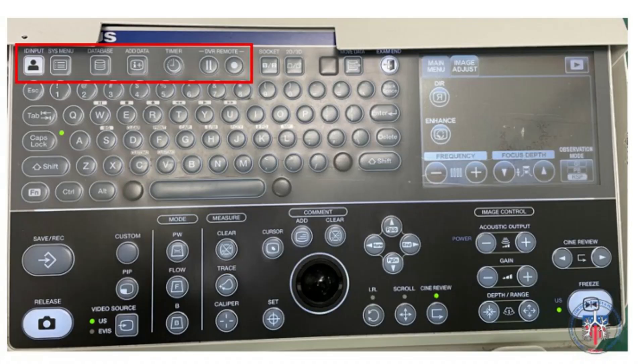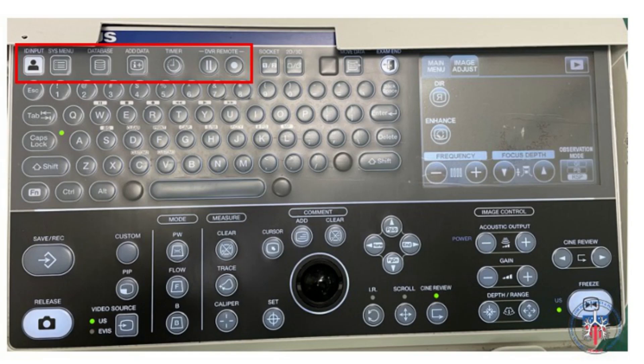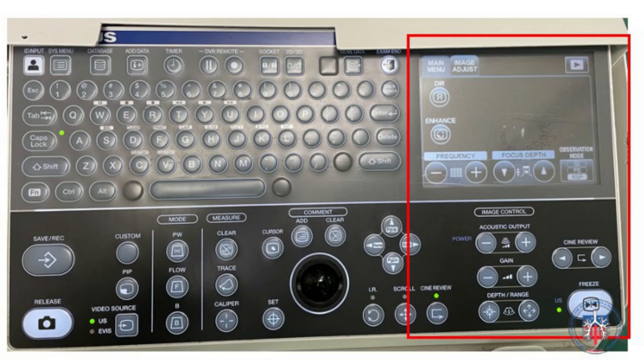Next we will discuss the key features of the keyboard and control panel. This photo demonstrates the details of the control panel and keyboard of the Olympus EU-ME2 system. Most other manufacturers have similar capabilities. The red box indicates the button used to input or modify patient data within the system. Here you can see the area of the keyboard used to control the ultrasound.